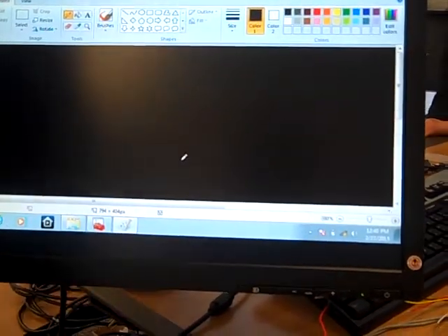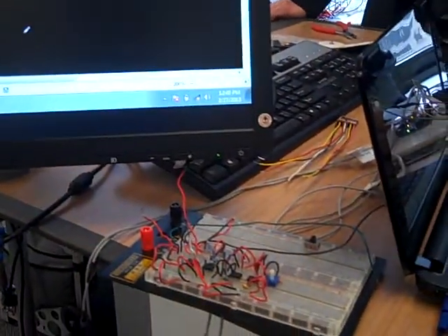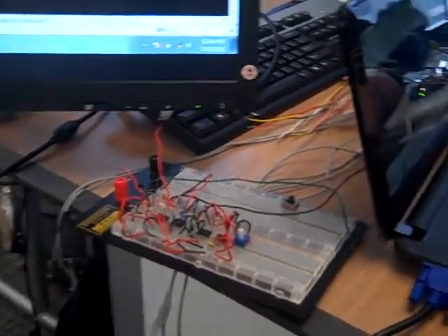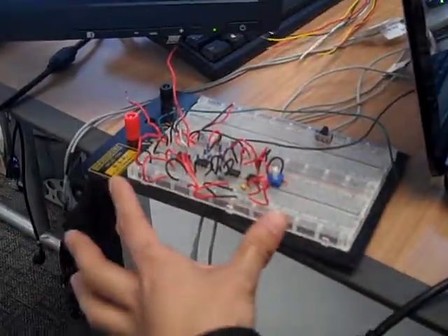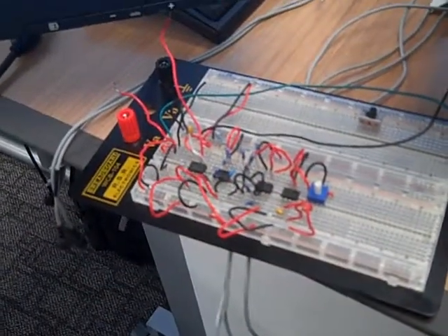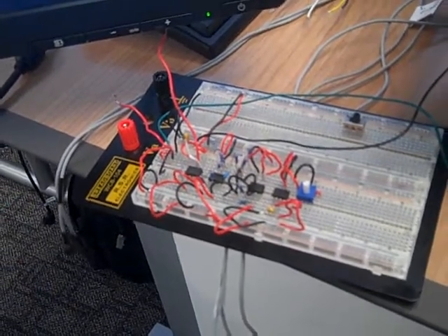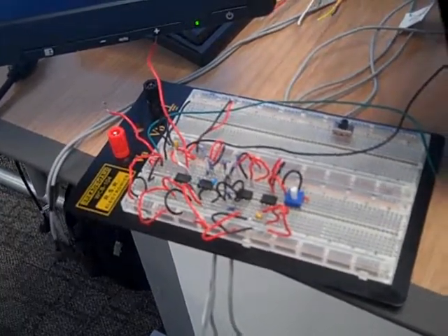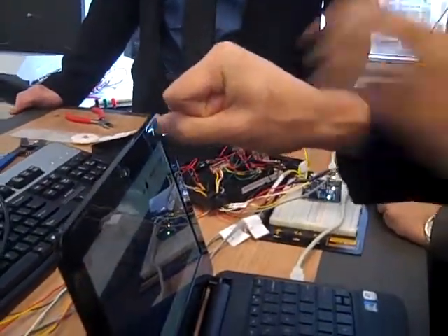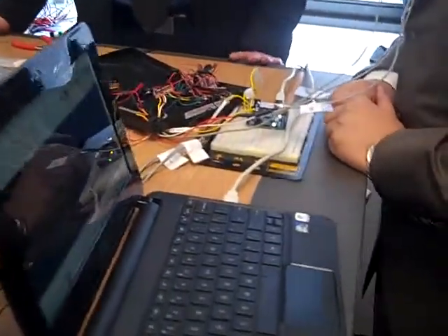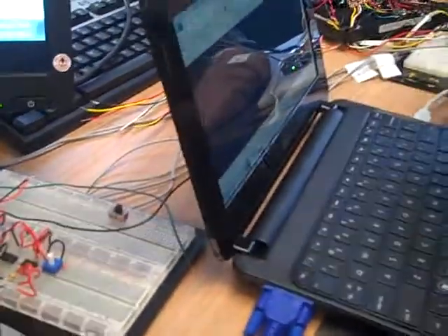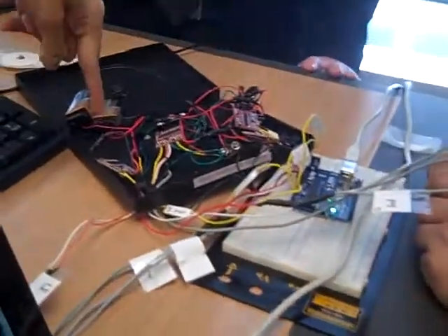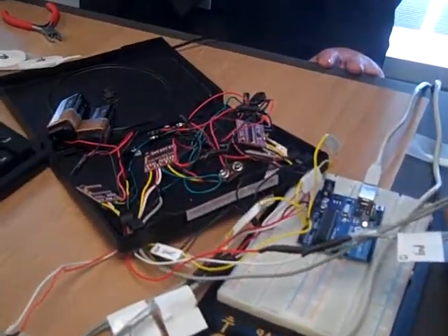So what makes that work? Do you use electrodes or what do you connect? Well, the main gist of it is basically we use electromyography signals, which we get by, this is an example of the prototype circuit that we got. So basically with this whole array, we're able to amplify the small signals that our muscles create when I'm flexing, because whenever the muscles contract and flex, it's actually these small microvolts.